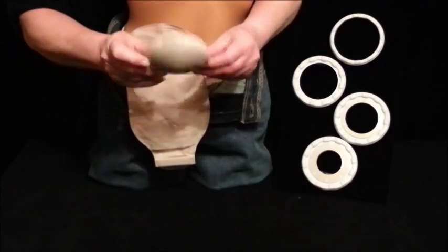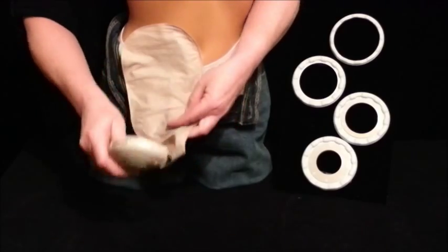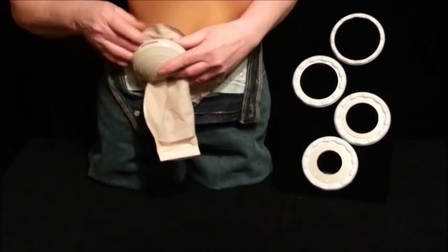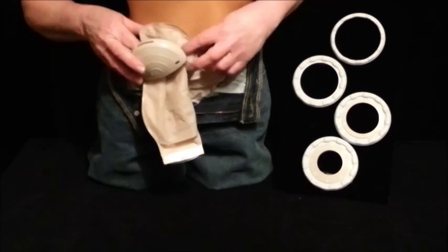Next, pull the pouch end through the opening in the back side of the guard, and raise it up, tucking the top of the pouch into the cup of the guard.